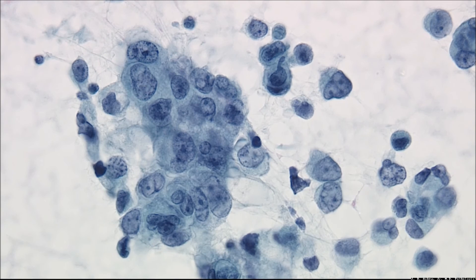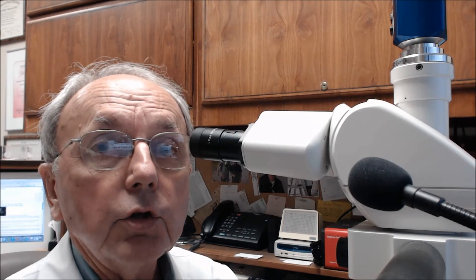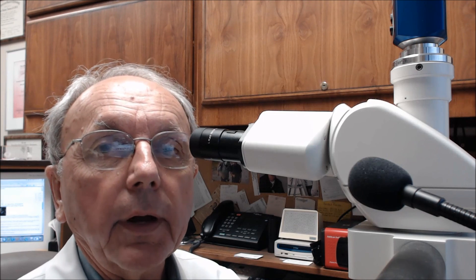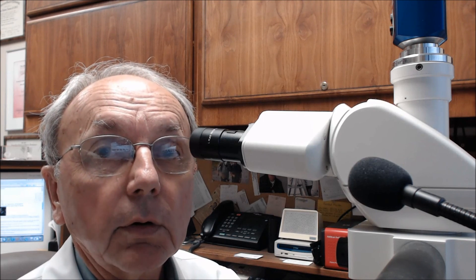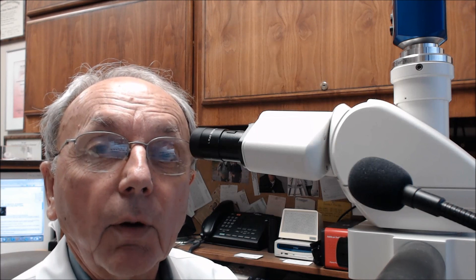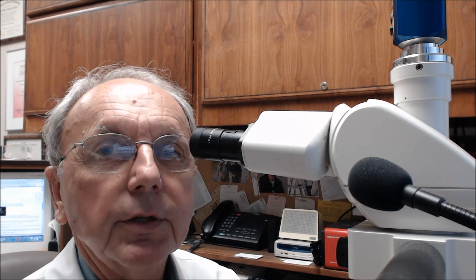Not only is it useful for determining if the specimen is adequate, but look at these incredible images for making the diagnosis. In conclusion, you've seen some fantastic FNA cytopathology images. This can be transmitted anywhere in your building, to another building, and for that matter, anywhere in the world. For the cytopathologist, some of these images should make your heart skip — or maybe have an extra systole. This is a fantastic system and it's available from Rob Meyer at Meyer Instruments in Houston, Texas.